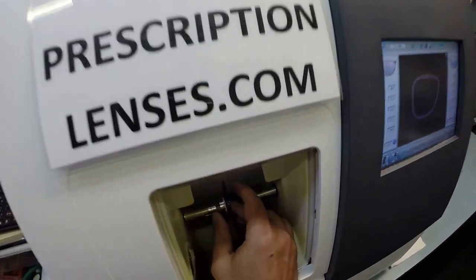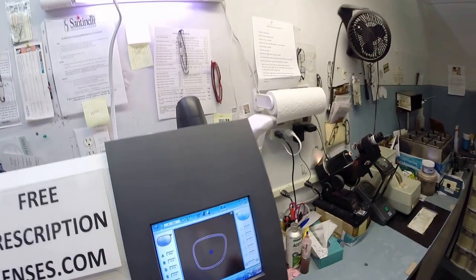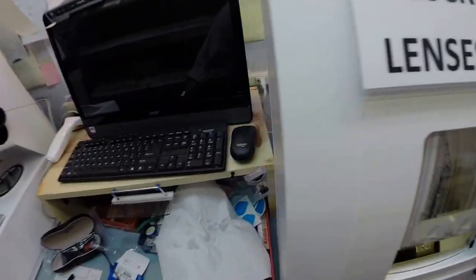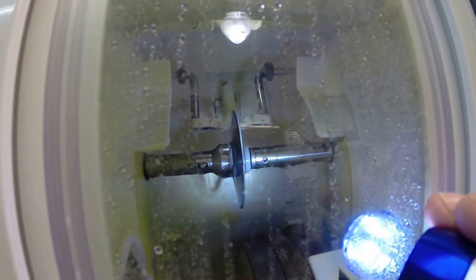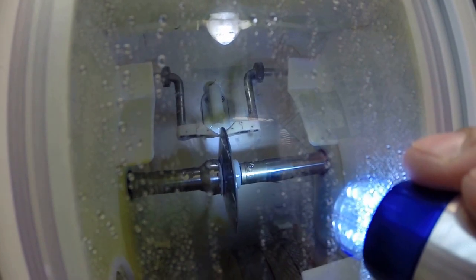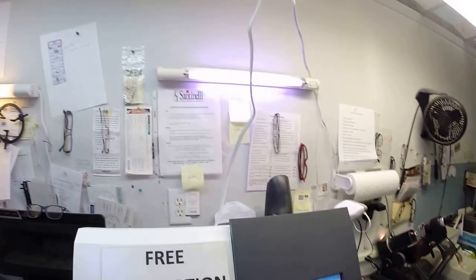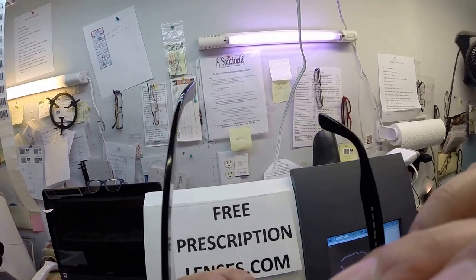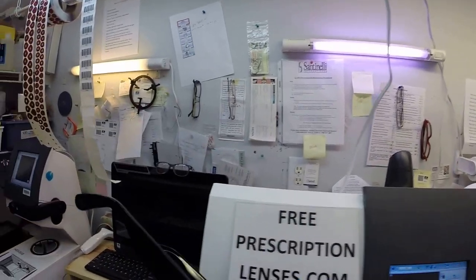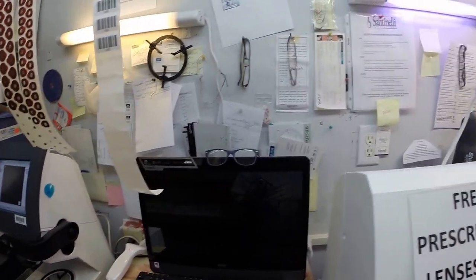And I'm going to take the left lens, put it into the chuck. Thanks, Chuck, Charlie, Chucky baby. Flip that over to L and hit start. And again, the door closes, that clamp shuts, and then the lens is going to be traced by two white styluses, making sure it's large enough to fit into the left side of the frame. And you actually see it tracing as it goes around. And of course, again, measuring the thickness at the point at every position of the lens to know exactly and precisely where to place the bevel so your lens fits best inside the frame. Although with your prescription, you're going to have no edge thickness. But every day I work with some very strong prescriptions, and that becomes more critical then.